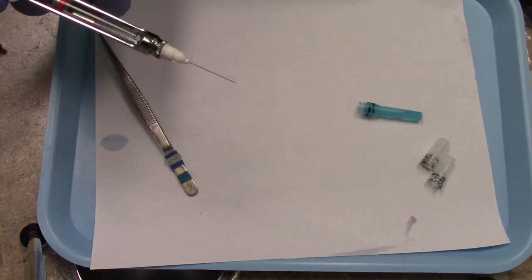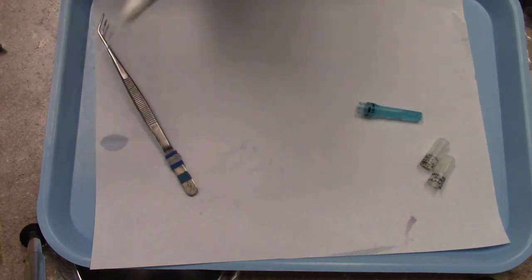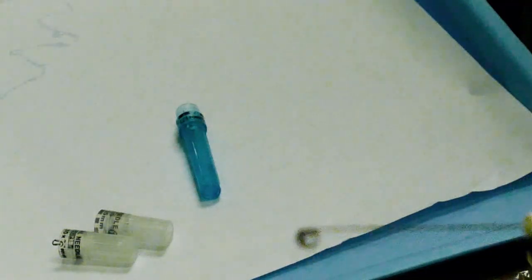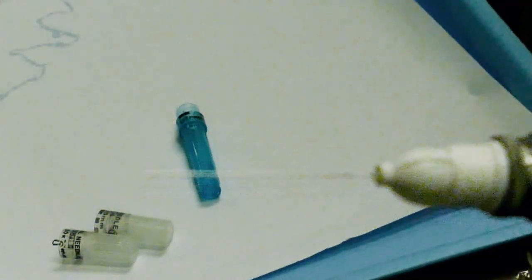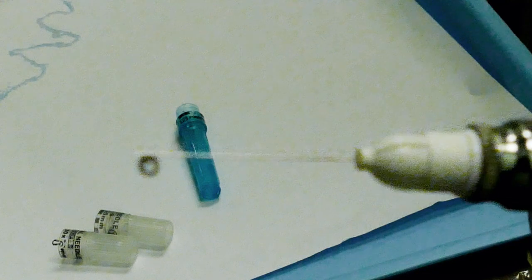There we have an assembled cartridge. If we uncap it, we can see it's now functioning fine. You want to give it a little squeeze to make sure that anesthetic actually comes out of there.